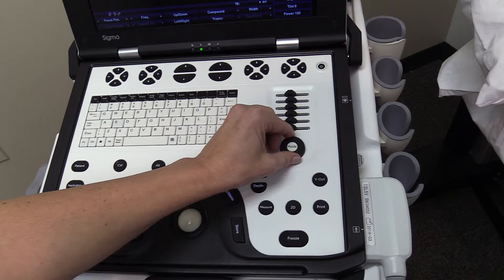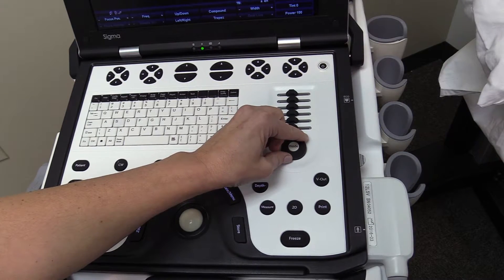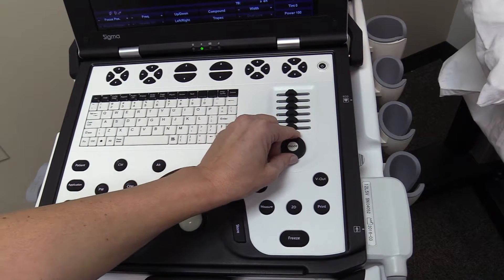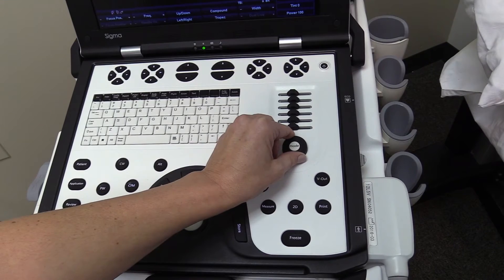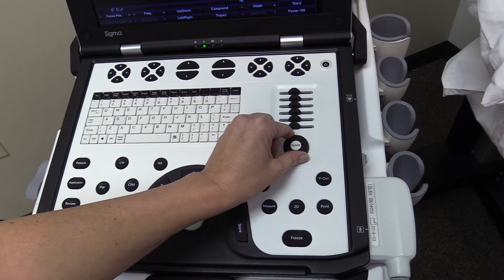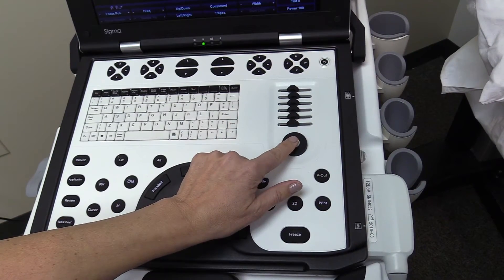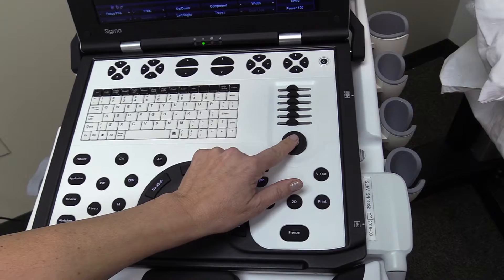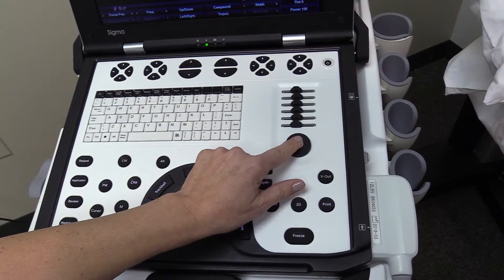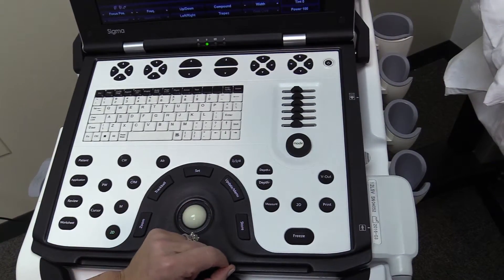To adjust the overall brightness or gain of the image on the screen, turn the gain control knob. The center mode key is a useful feature that optimizes the entire field of view with one touch.